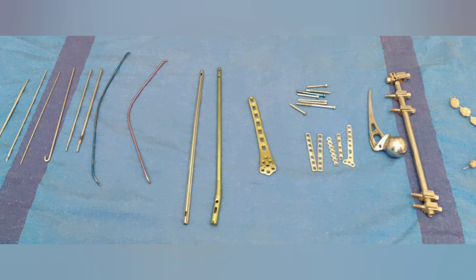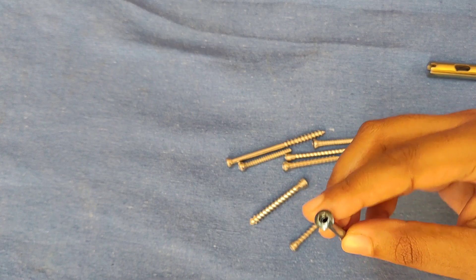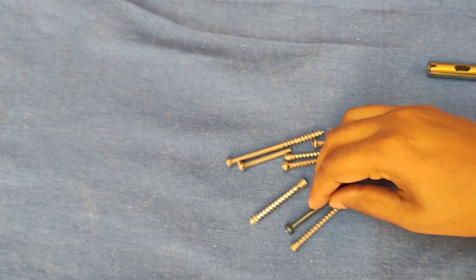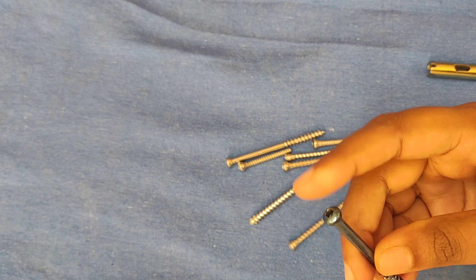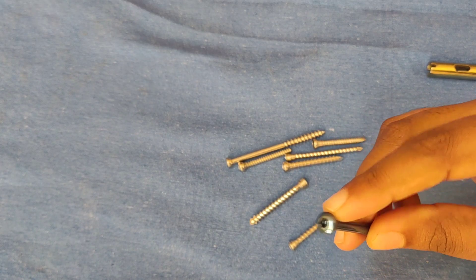Today I will discuss a few implants which are usually kept in orthopedic practical examination. First, I will discuss orthopedic screws. The screw is a mechanical device which converts torsional force into compressive force.